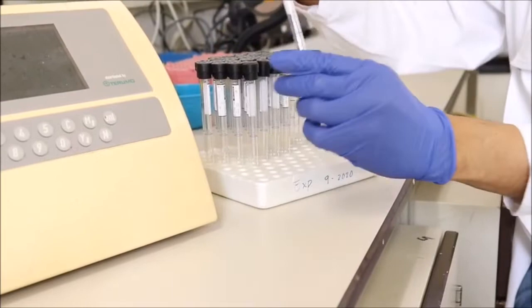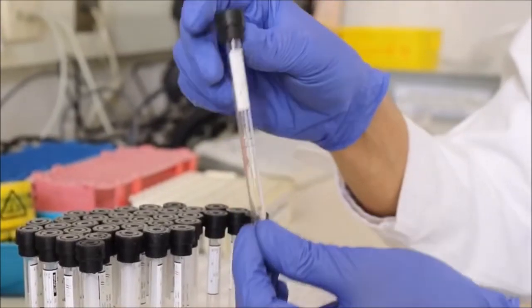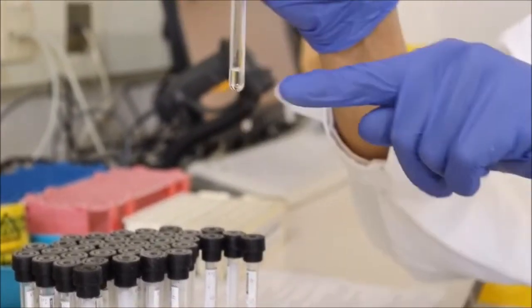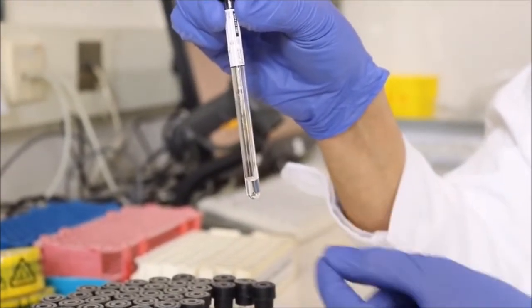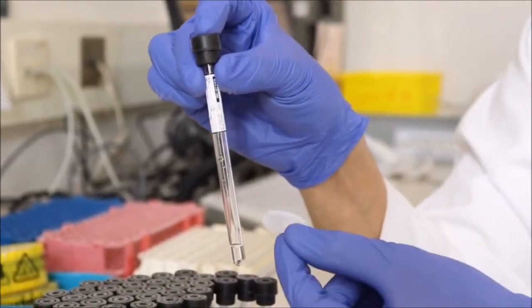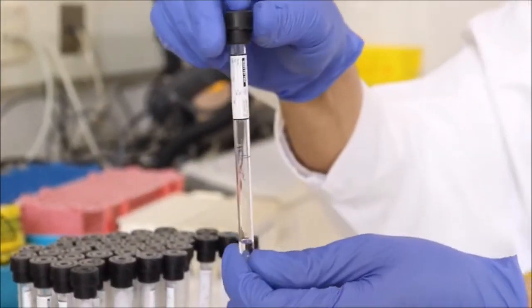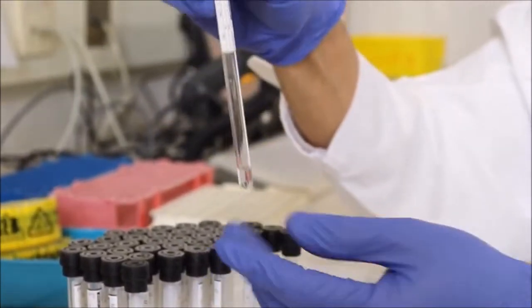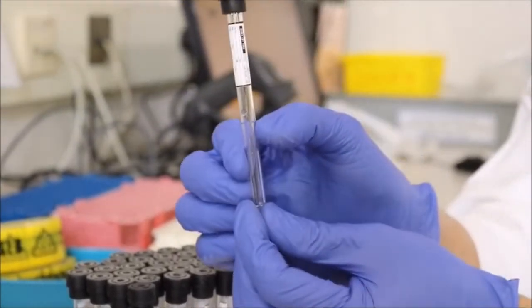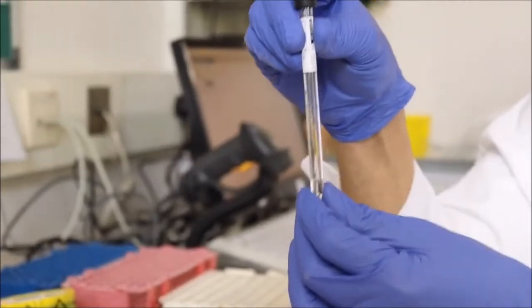Okay? This tube is used for that purpose. Once we fill up this special tube containing the anticoagulant, sodium citrate, a solution that prevents the blood from clotting, your blood cells will be uniform and in a free, unclotted state. So it will not solidify, in other words. Once blood is filled up to this mark, mix well, and then we will allow this to settle for a specific time frame.